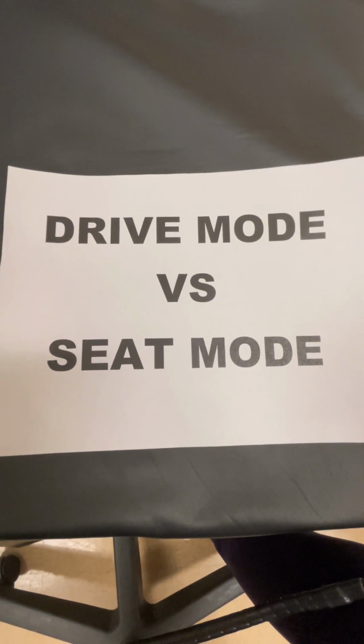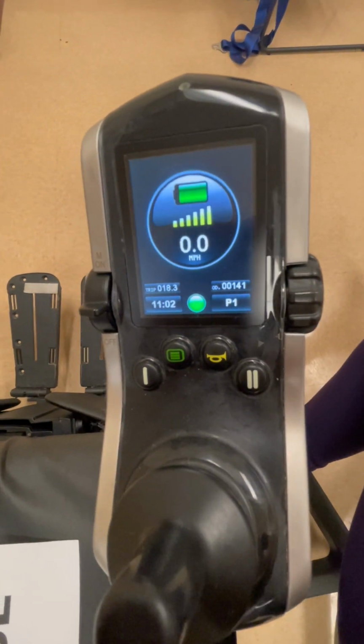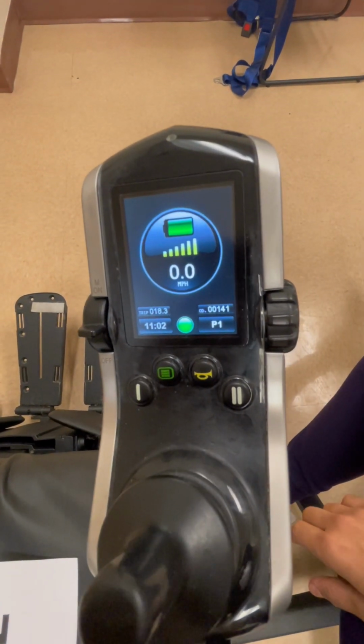There are two ways to move between drive mode and seat mode on this power wheelchair. Go to your screen. The fastest way to move between these modes is to press the double line button. This takes you to seat mode, and the single line button returns you to drive mode.